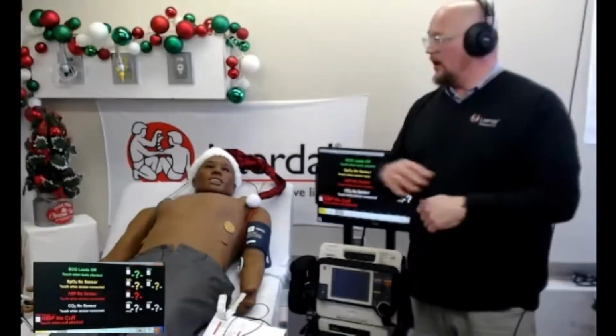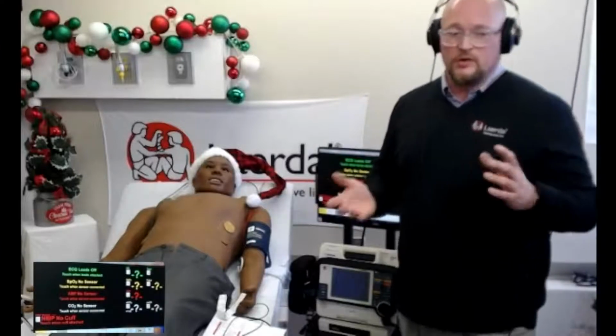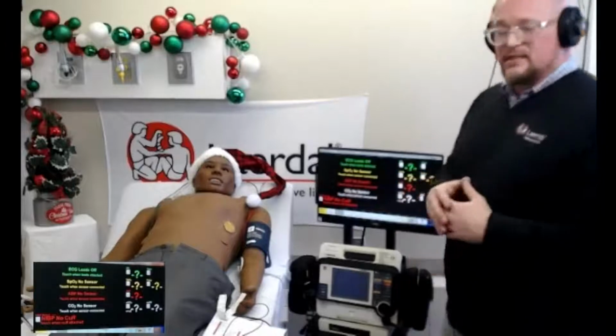This is all great. So I restarted my scenario again, and I got a normal, healthy patient. As long as you have the newer software; if you're still back in LEAP 5 and 6, you're definitely going to need to come forward. For those people that have an older SimMan 3G, older than 2016, you're not going to really want to come past LEAP 7.3. But in that version, you will get this defibrillator monitor.